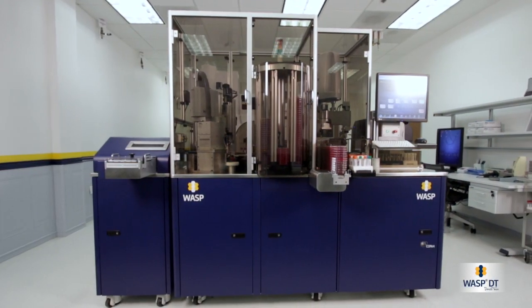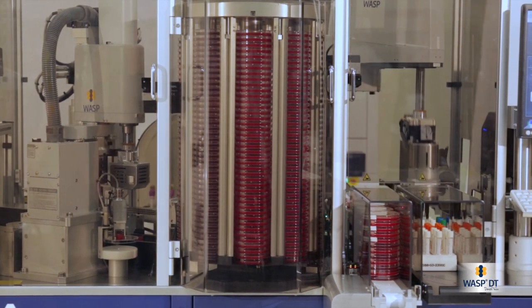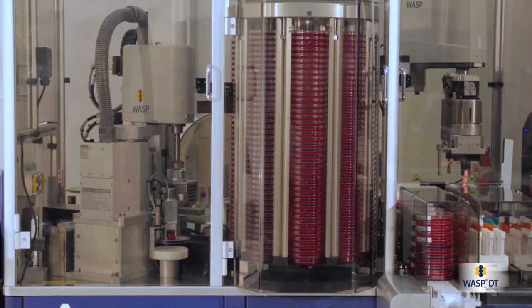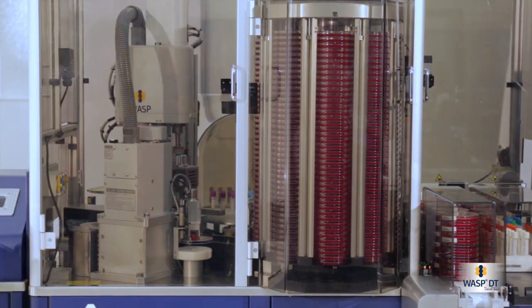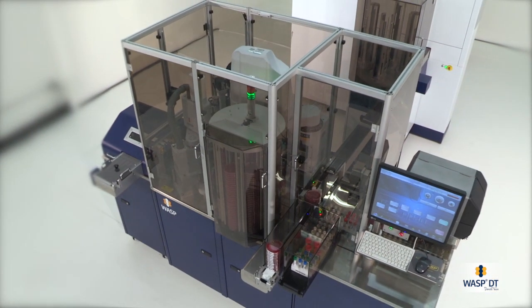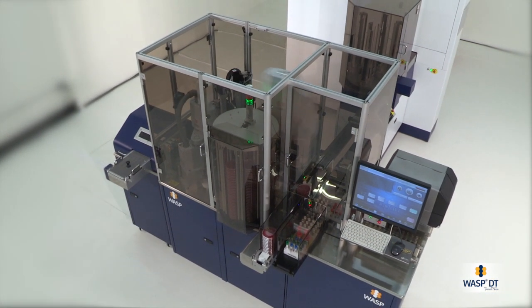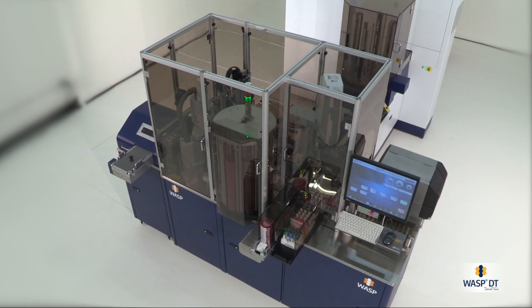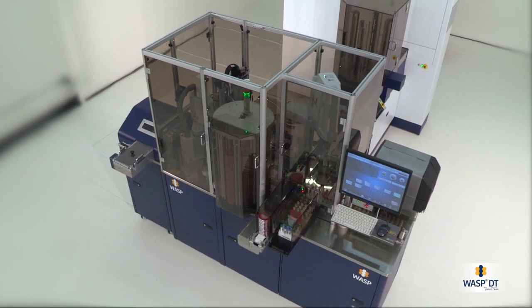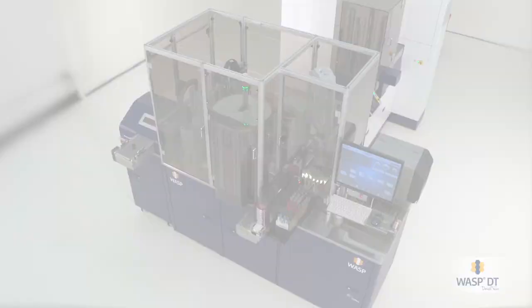By maintaining a close relationship with the microbiology community, Copan continues to make innovative strides and has designed WASP as an open-platform modular instrument for the seamless addition of new features and capabilities.